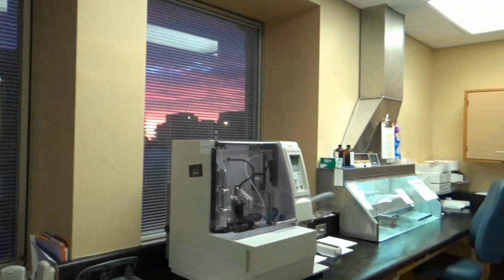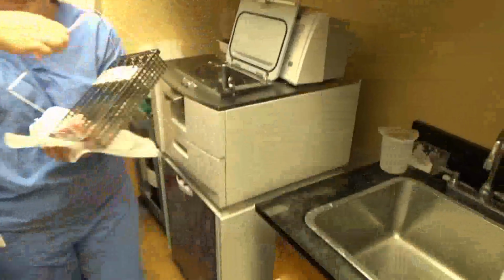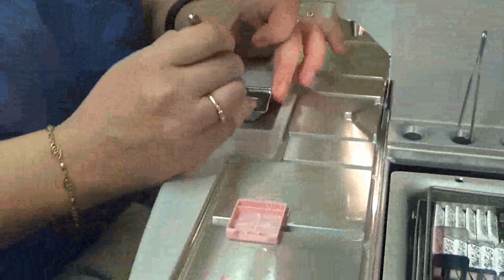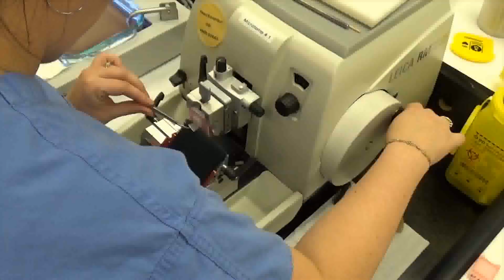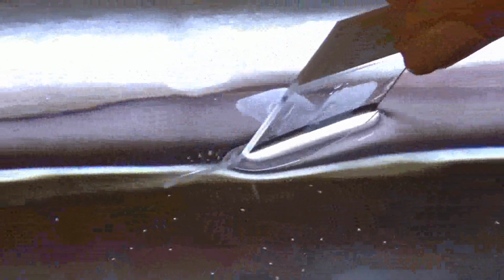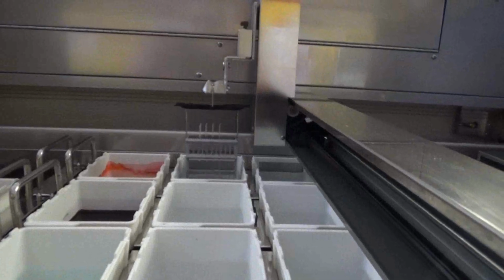Okay, the next morning, bright and early, our histotechnologist takes out the tray containing the cassette. Here she is putting the cassettes into the embedding station. Now she is going to embed the tissue into wax and put the cassette on top of the wax so she can keep track of the tissue. When the wax cools, she cuts thin slices of the tissue on a microtome and then floats the sections in a water bath. She then picks up the sections with a glass slide. Then she puts the slide in a machine that stains it with hematoxylin and eosin.